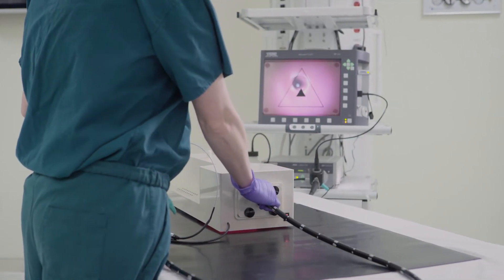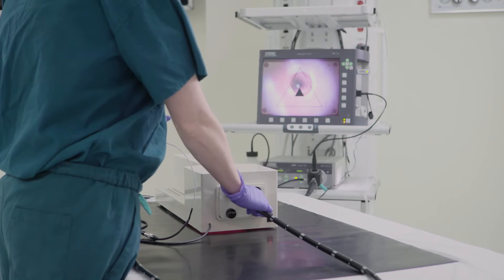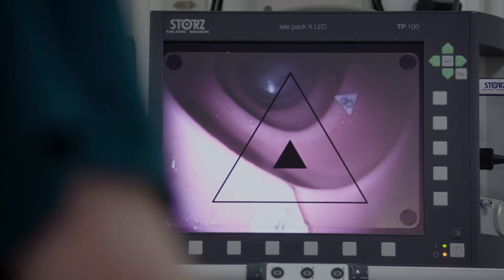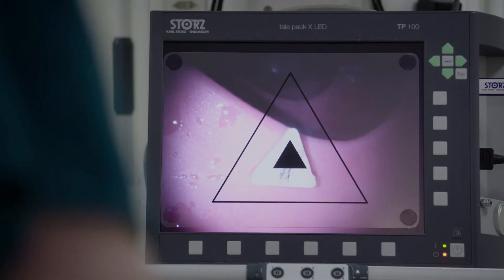Starting with basic endoscopic navigation, the trainee uses scope torque and dial control to align ten sequential shapes within the lumen.